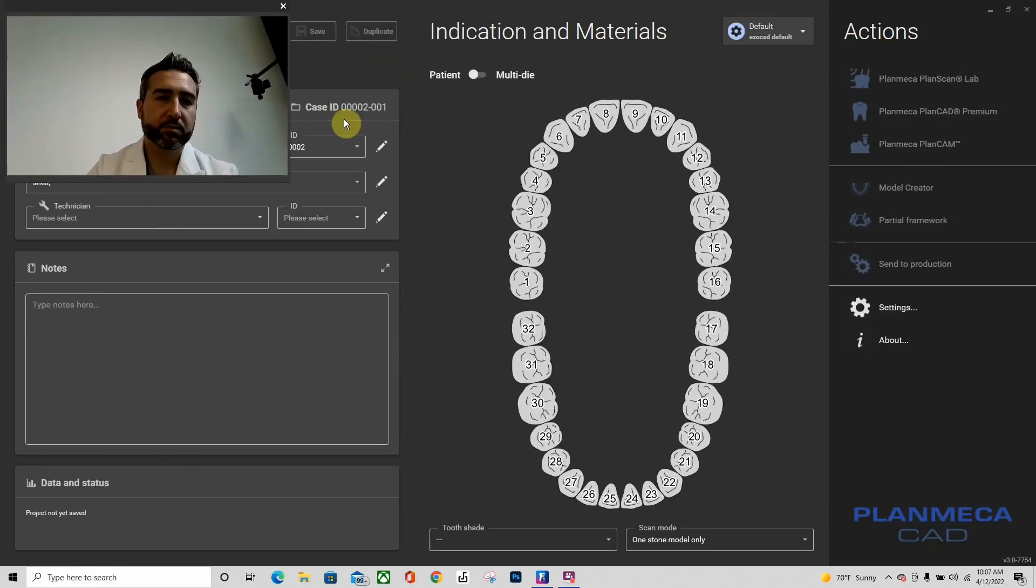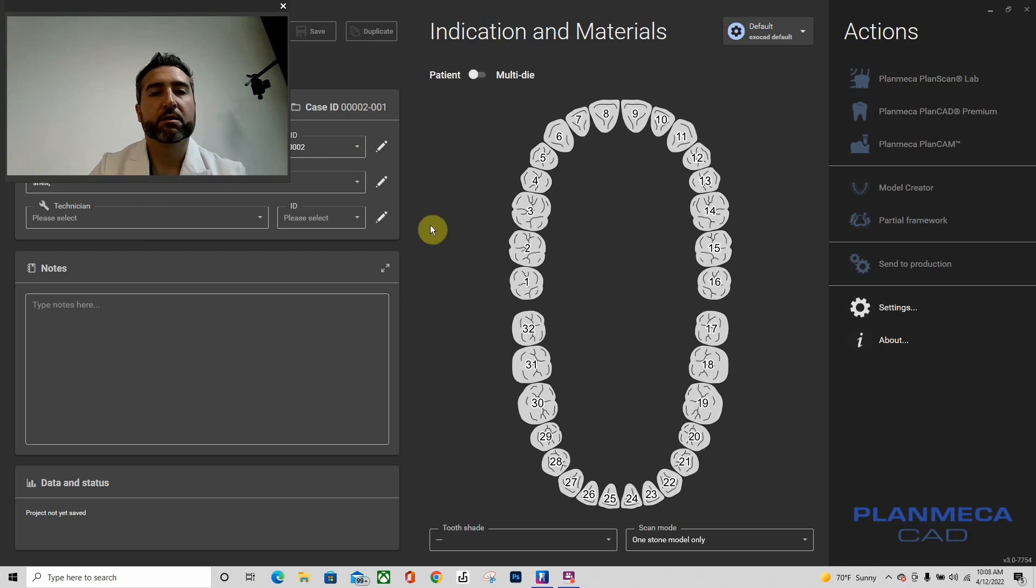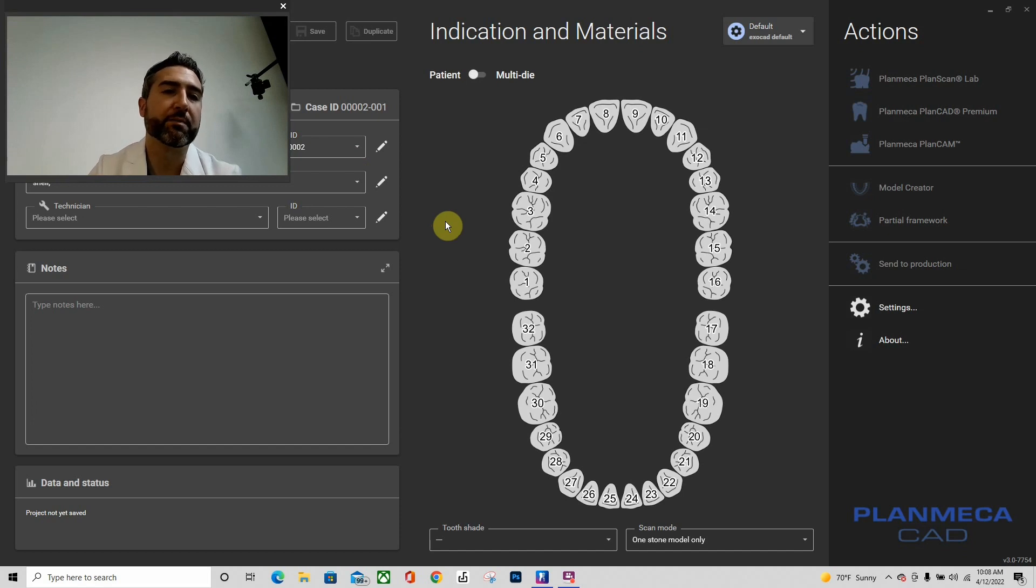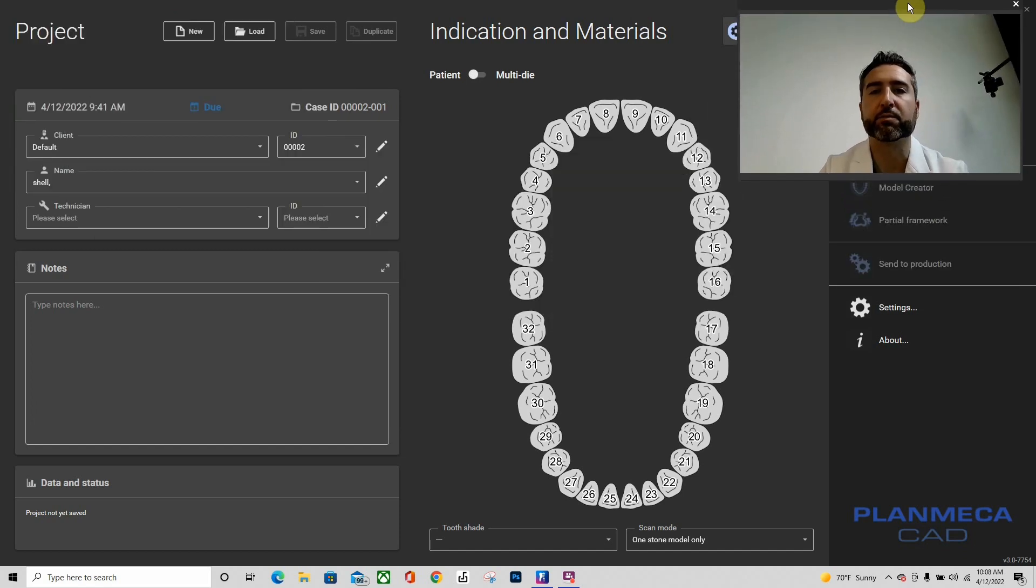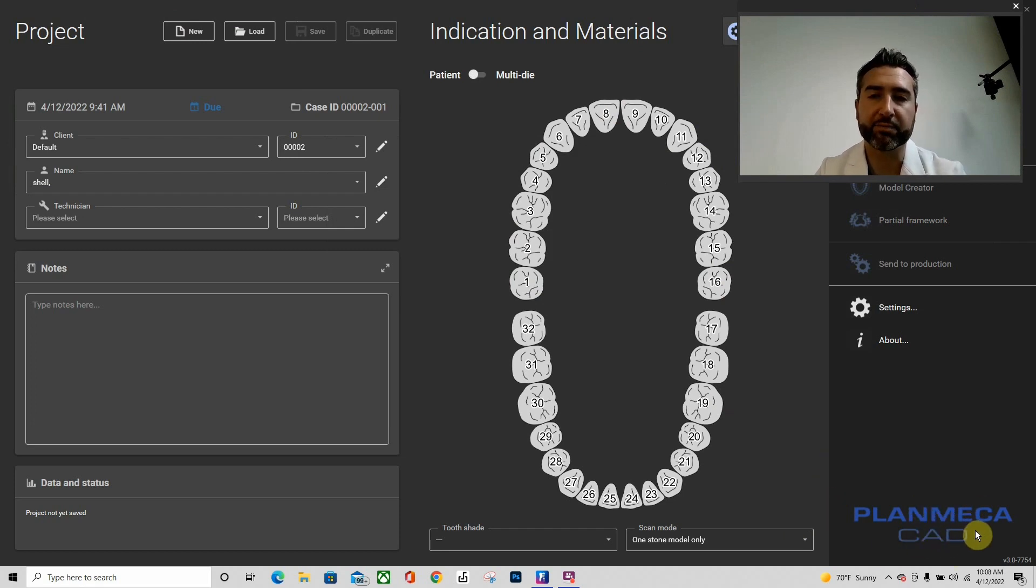Hi guys, let's go through how to do some shell provisionals. The way I like to do them is I already have a mock-up made and a solid printable model of that mock-up, and then that's what I bring into my shell provisional module. I'm using Planmeca's version of Exocad, it's called PlanCAD Premium. It's the same thing except optimized for Planmeca's mills and scanners, so everything I'm showing you will apply to Exocad Galway.